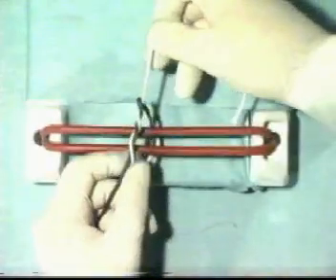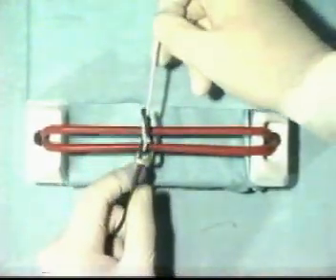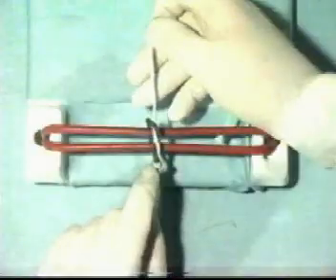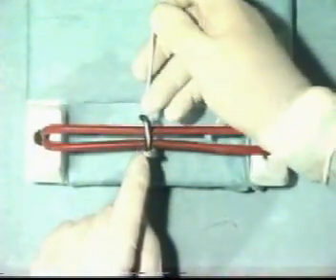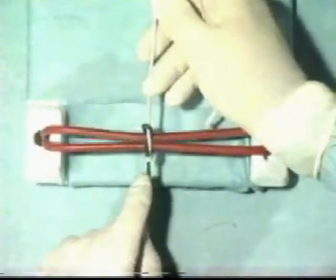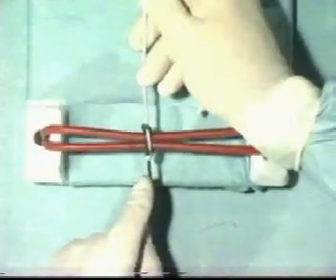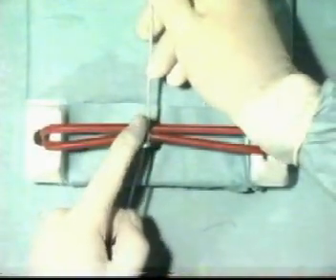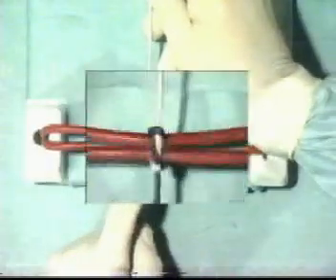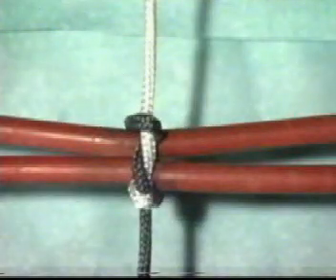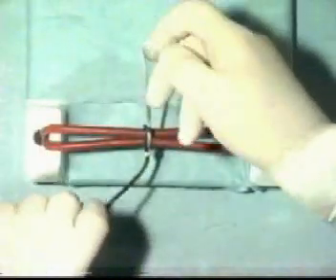Then, you're in a position to snug down that first throw of a surgeon's knot, and as you do so, ensure that it lies correctly. Tighten that first throw appropriately. As you can see, it doesn't look very pretty with this thickness of thread.